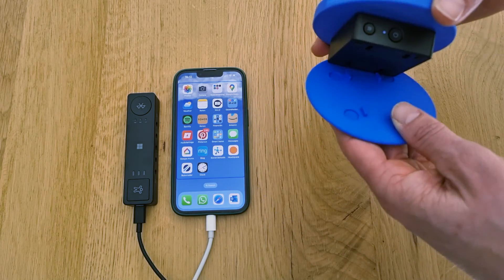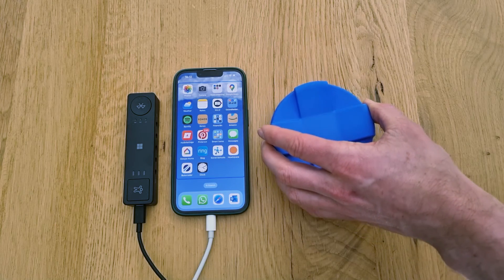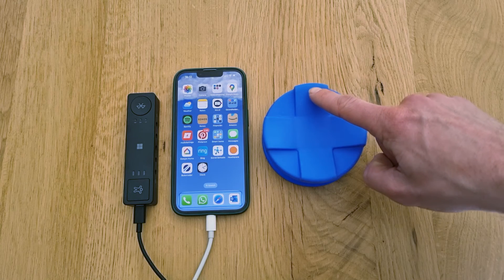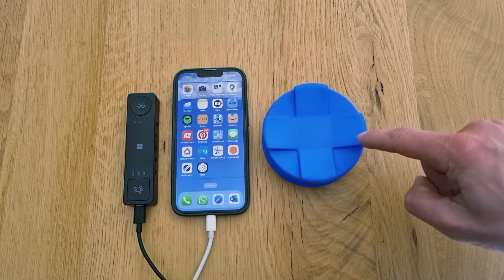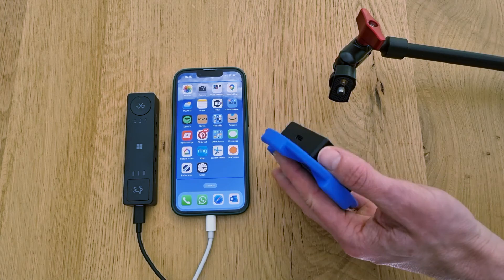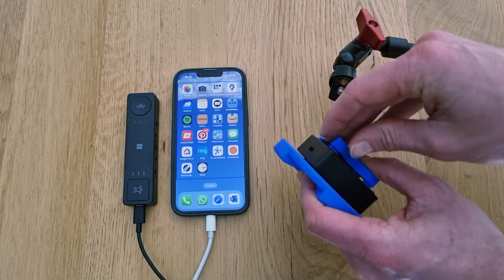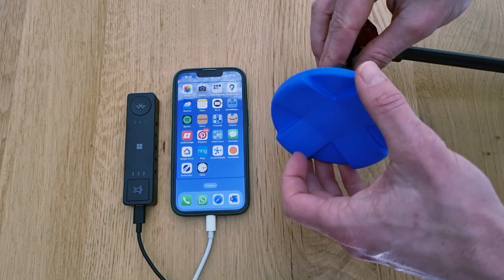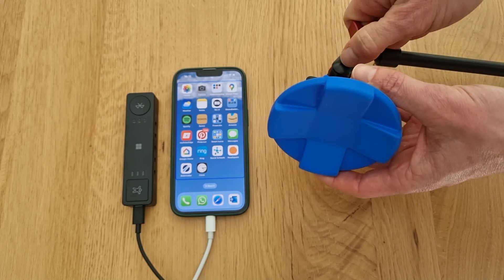We're also showing you a new base plate that you can use with larger toppers. If you're increasing your hit area and also want to lower your force of actuation, these larger toppers can be interesting, and this base plate allows you to create a more solid base for them. Finally, if you want to mount your button with a quarter-inch screw solution, we also have a 3D printed piece for that. Make sure to check them out in the Shapeways Marketplace — you can download the files there for free or order the parts through Shapeways.com.